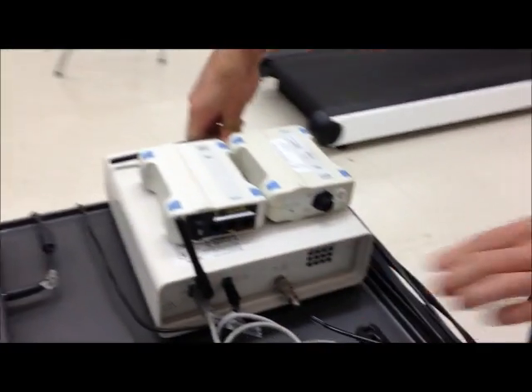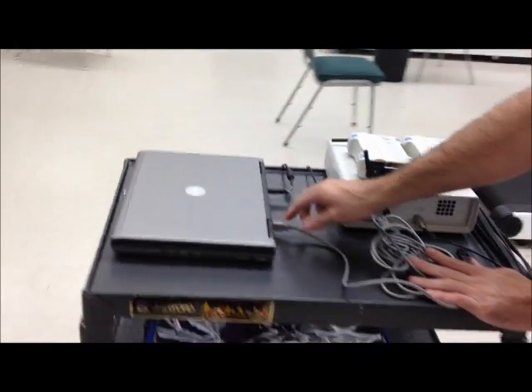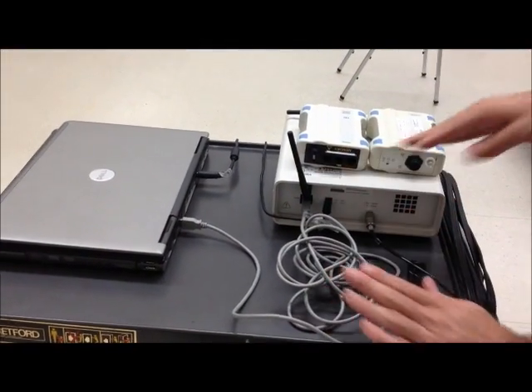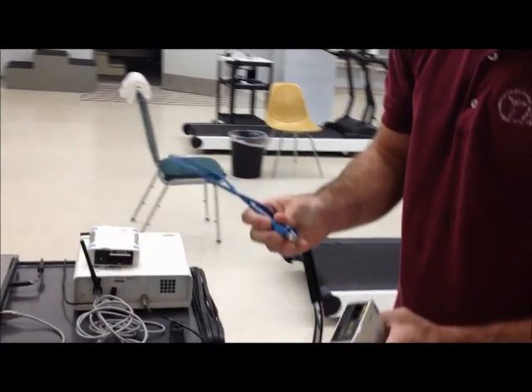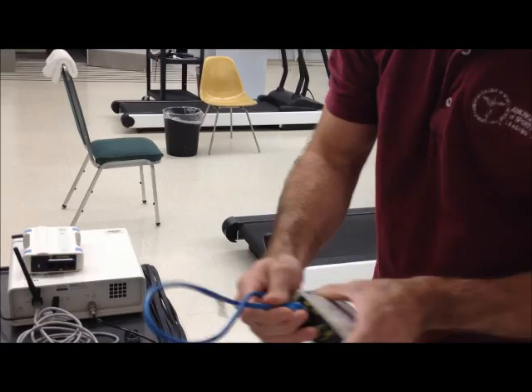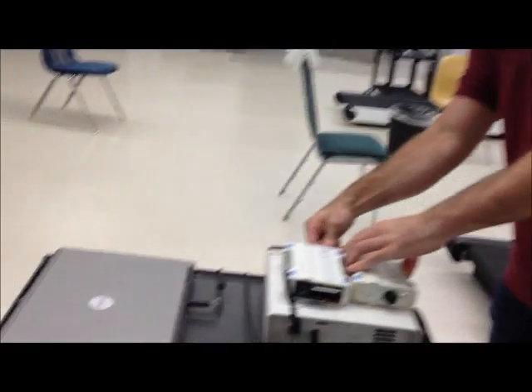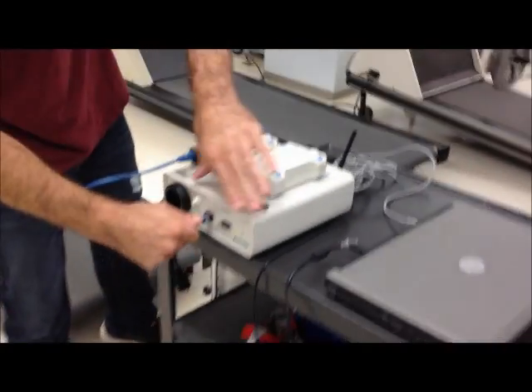In terms of setup, you want the computer to be through USB attached to the back of the receiving unit. You want this receiving unit. You can use any ethernet cord, blue is just the color, they're all the same. Plug it into this one with the yellow bar into the front of the receiving unit right here, this SBX port.